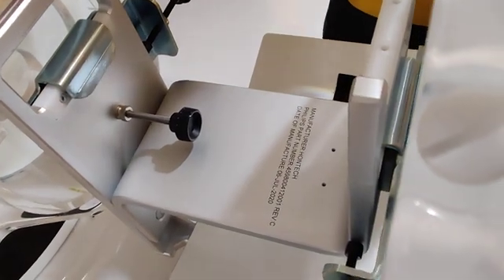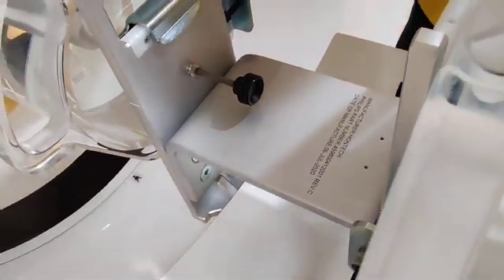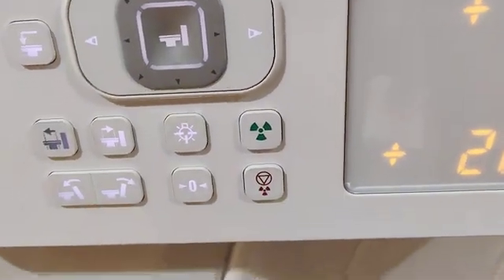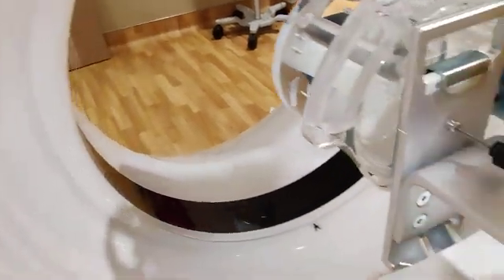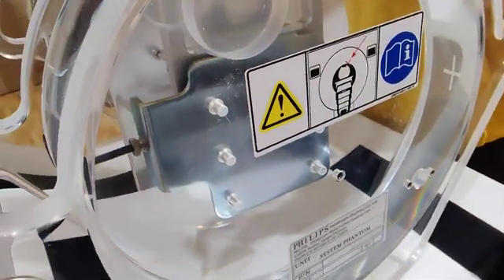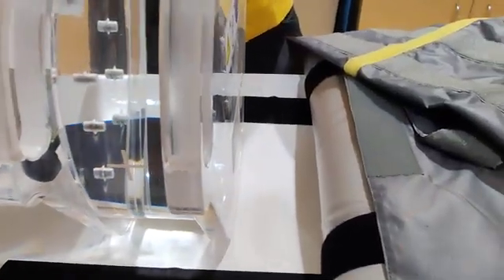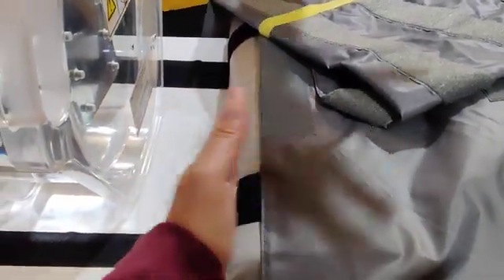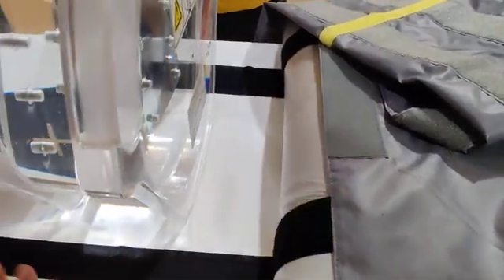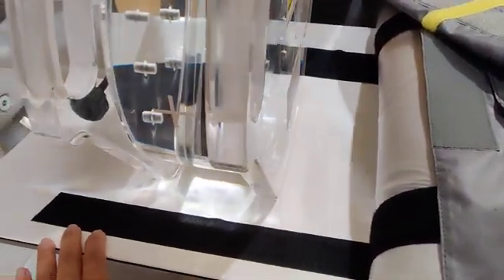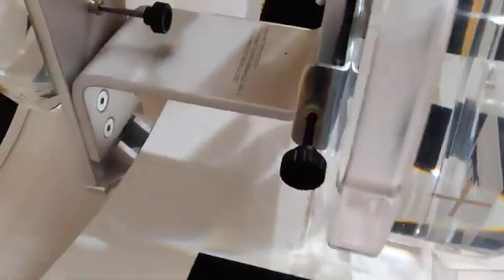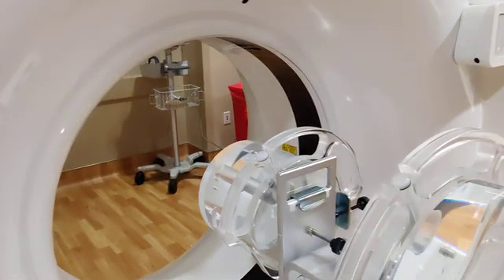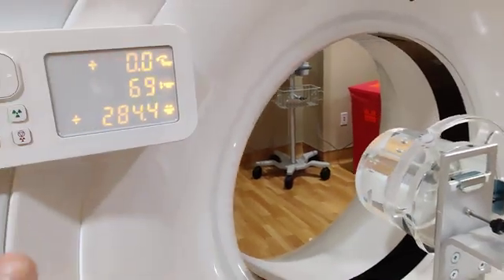All right, so just giving you a heads up. Hopefully it won't happen, but it could. Don't think there's something wrong with your QA. It's just a matter of getting this where it needs to be. I've seen other people at sites leaning the phantom on and putting it up here thinking it's fine, but it's not meant to be done that way. We don't have to put it in and zero it out - it's going to be all controlled inside. Hit the wrench, okay, so quality assurance.